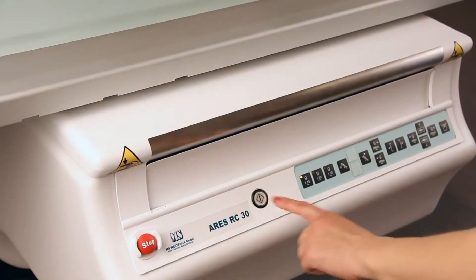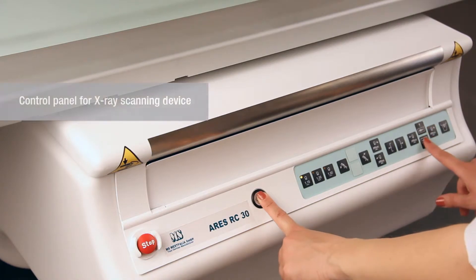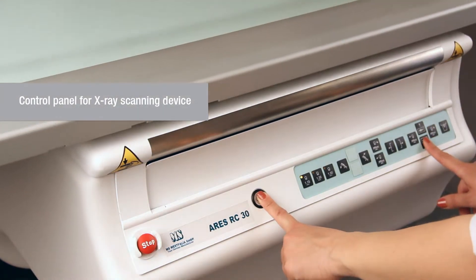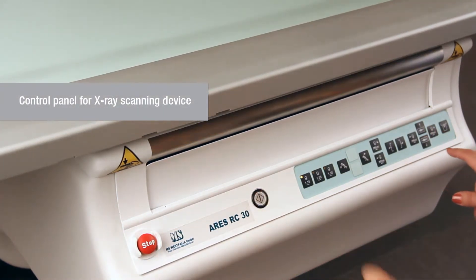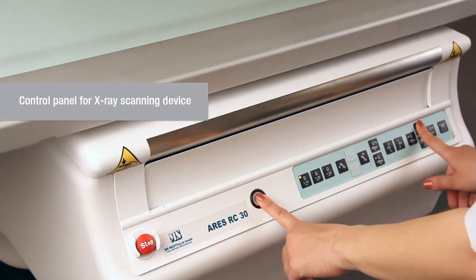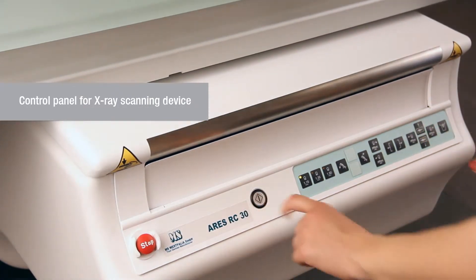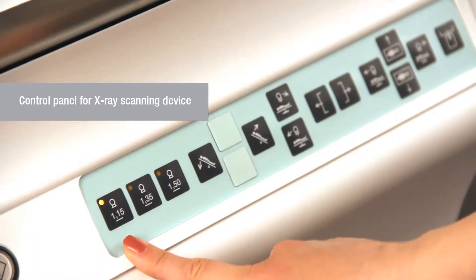Keyboard for the system control is placed on the scanning panel. With the help of this console one can set focal distance.